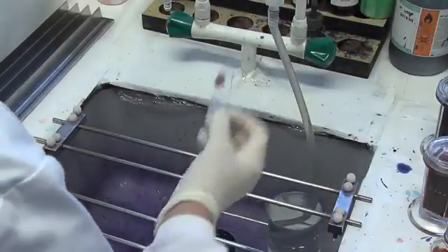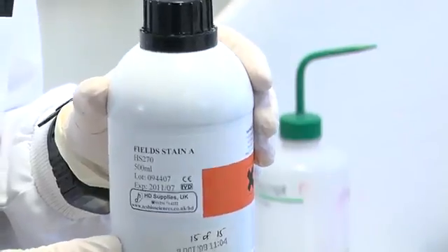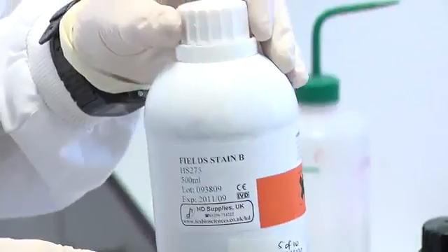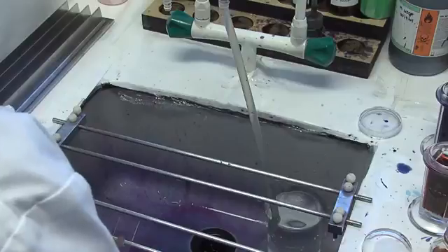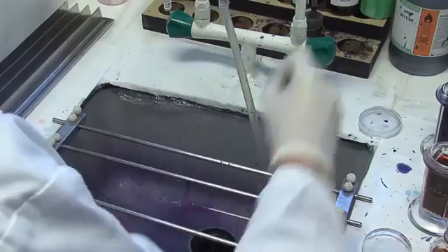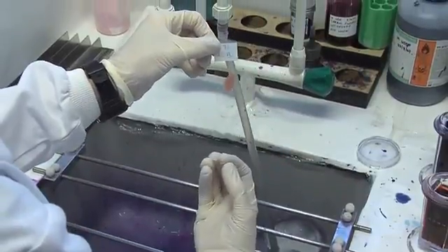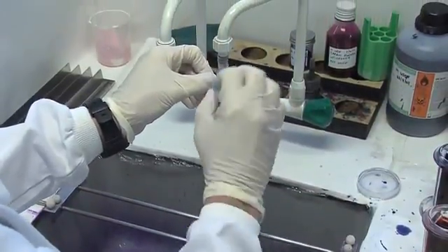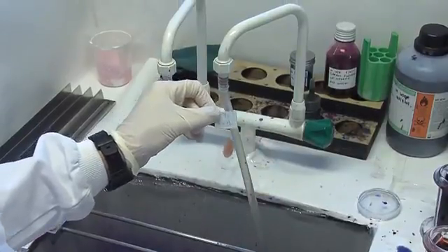The thick film we're not going to fix. The thick film is stained differently — we're going to use neat Fields stain A and neat Fields stain B. We do 3 seconds in stain A, water, stain B, water. Then leave it to dry upright so that all the debris from the lysed red cells comes down, leaving a nice clear area to examine at the top of the slide.